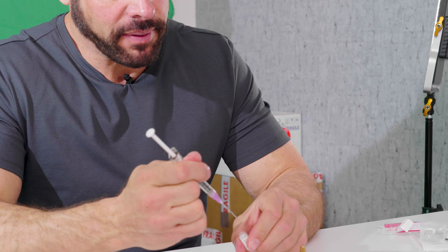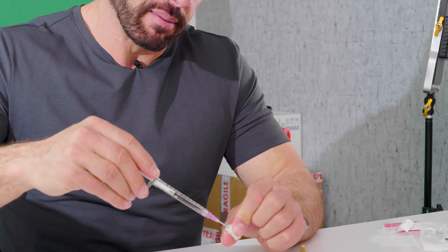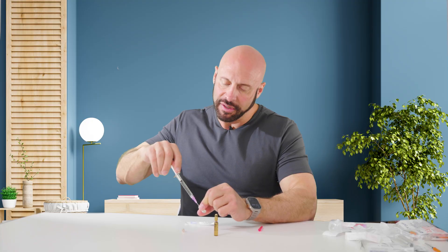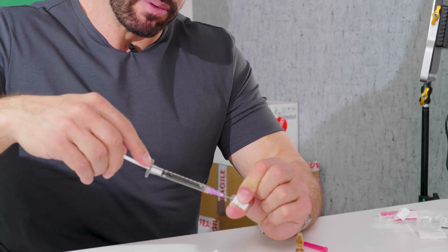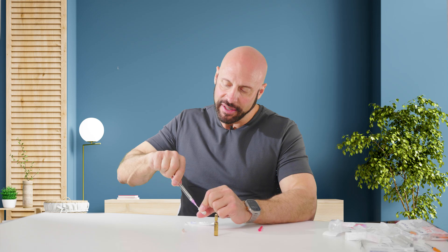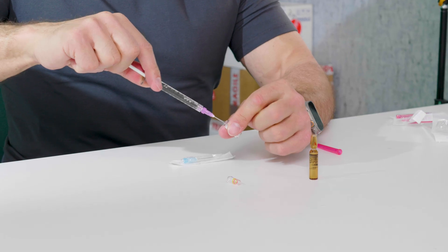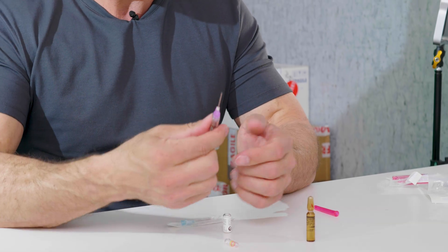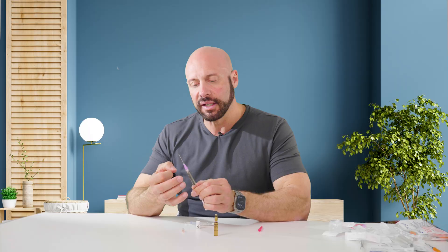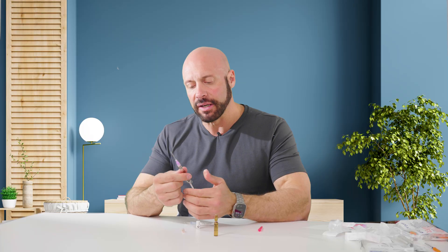When I've got one massive bubble together, I push up from the bottom of the syringe into the needle until I see a tiny little droplet come out. Flick that away. Then I place the needle back in the ampule and remove the rest of the contents — pulling back on the plunger, really getting all of it. This is a tricky bit because if you can't get this right, you may not get the full contents out. Keep the needle towards the bottom of the ampule and move it around a little. The syringe will want to push back in, so with your hand keep pulling — you might even pull it back beyond the one milliliter mark. There'll be tiny air bubbles, but you can pull it and that should be good towards the end.